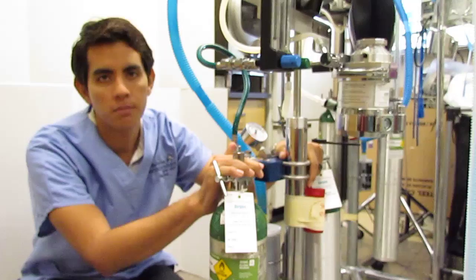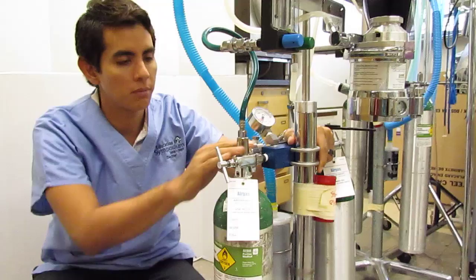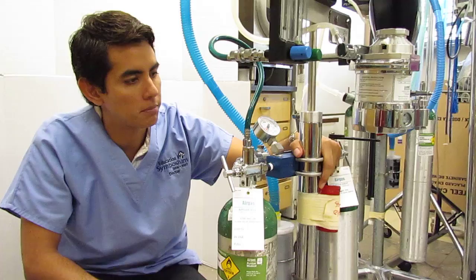There shouldn't be a single part on this machine that is a mystery or that is unknown to you. So you're going to be able to go through this machine or any machine like it and be able to identify all of its pieces.